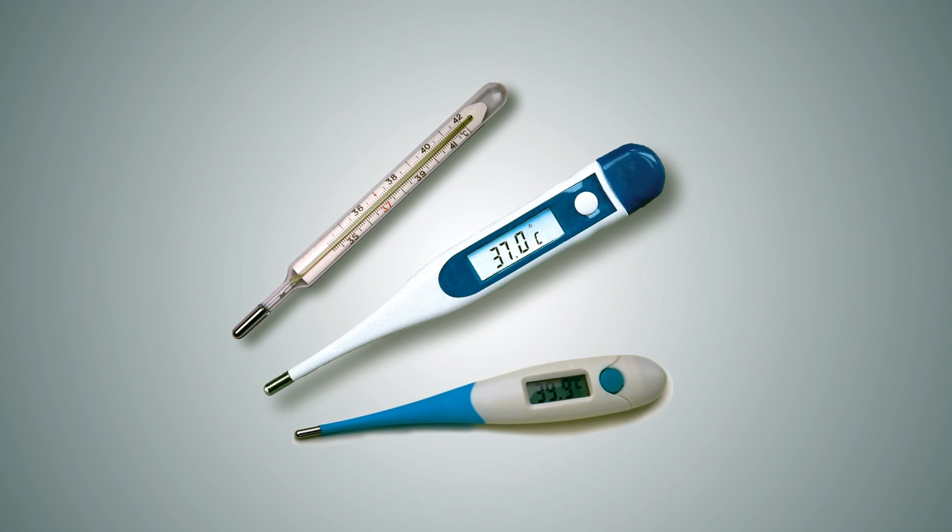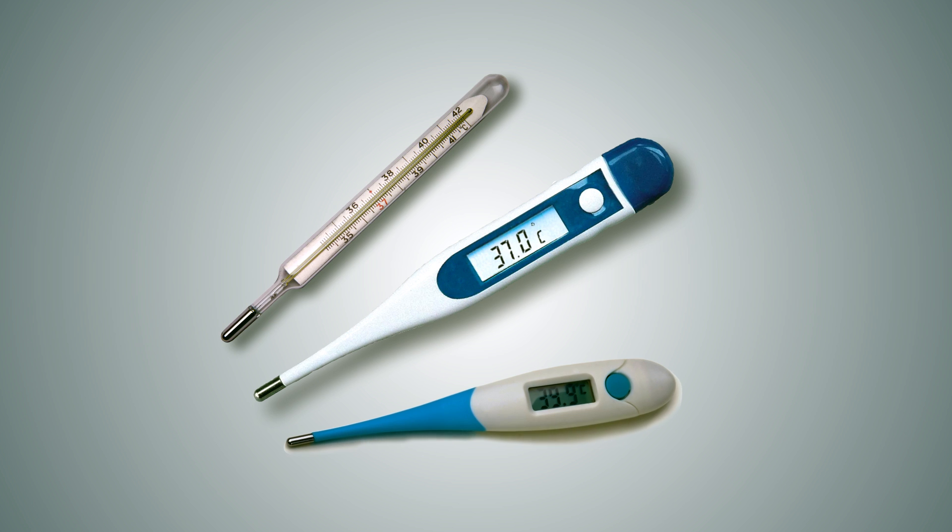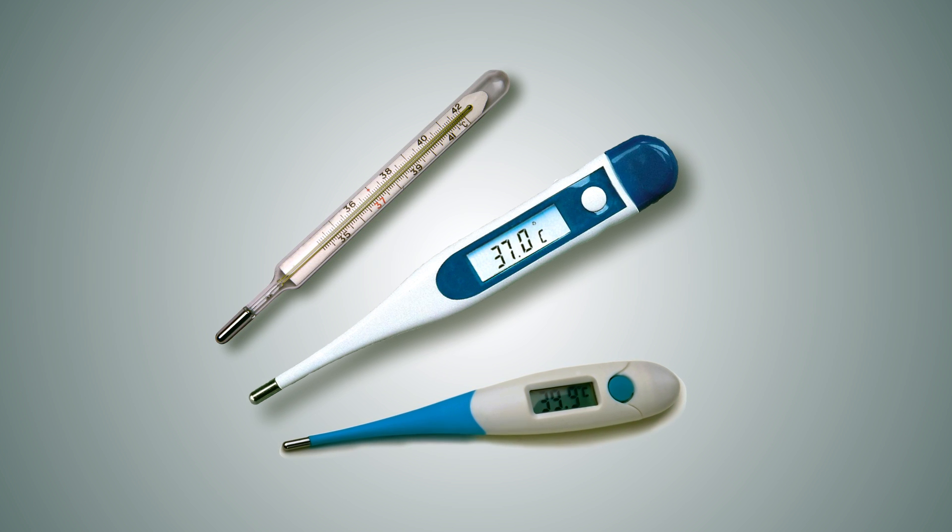It's time to do away with age-old so-called digital thermometers. They are mostly inaccurate, fussy, time-consuming, unhygienic and troublesome.